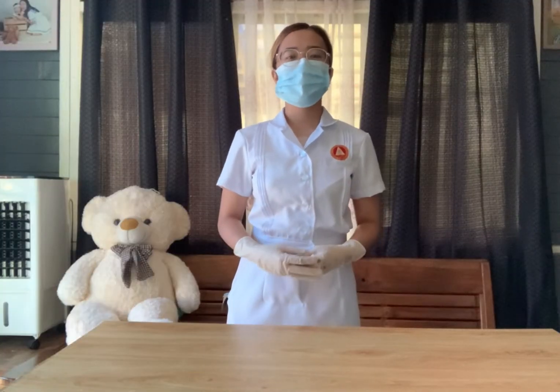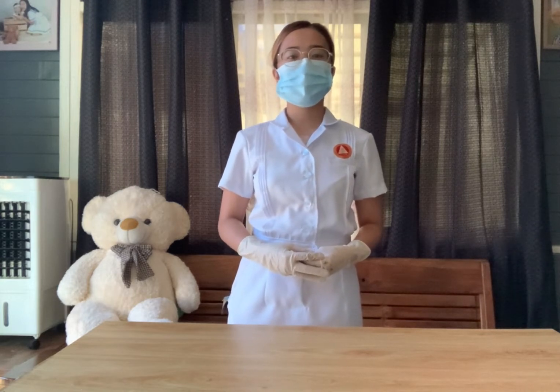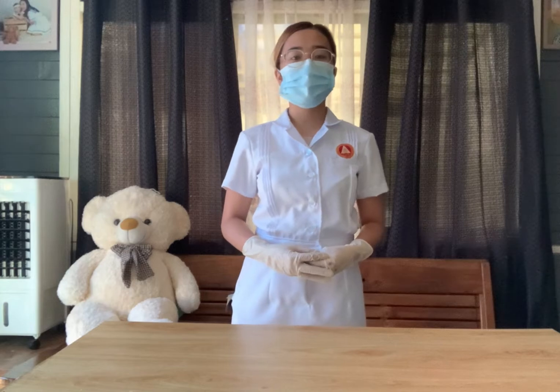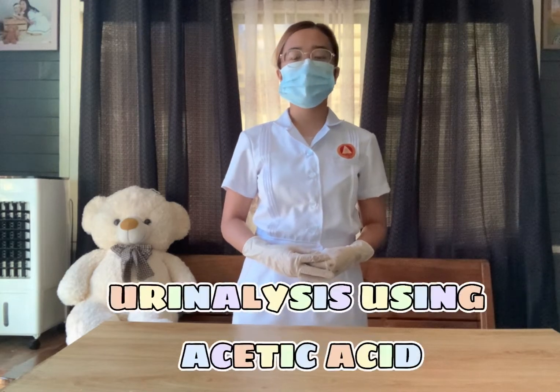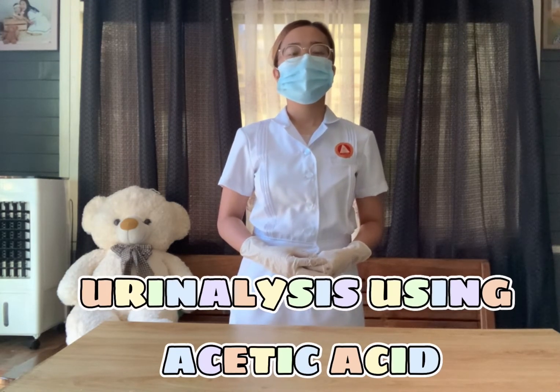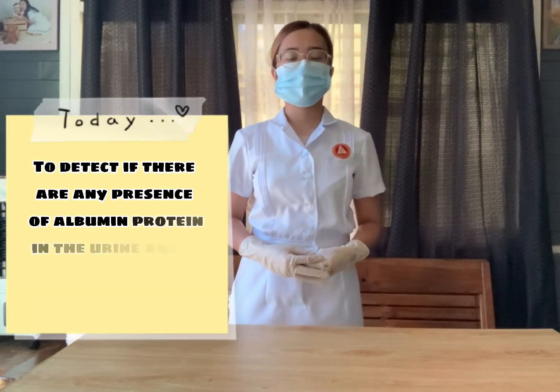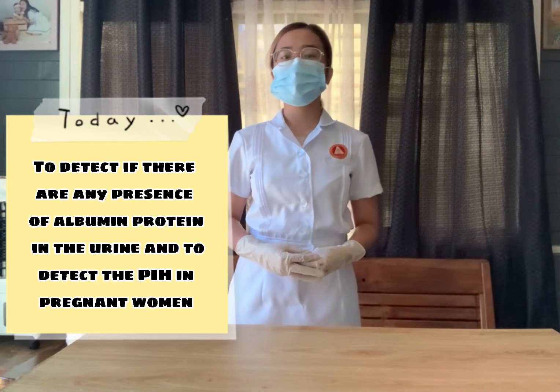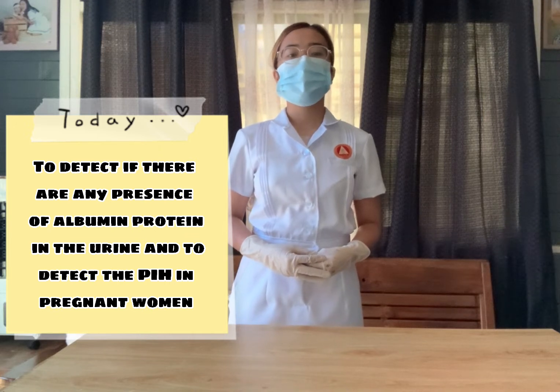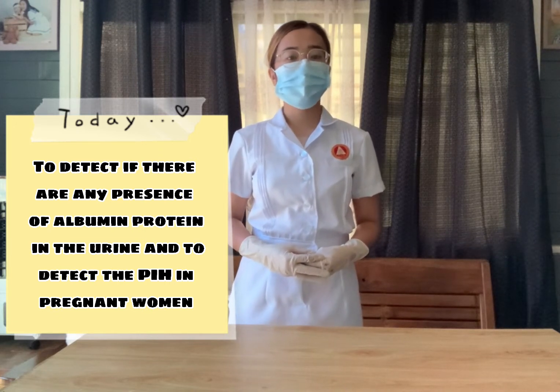Good day everyone! I am Kauyuri May Amisidro, a nursing student from Tarlac State University. Today we are going to perform the urinalysis using acetic acid. The primary purpose of this test is to detect if there is any presence of albumin protein in the urine, as well as to detect PIH in pregnant women.